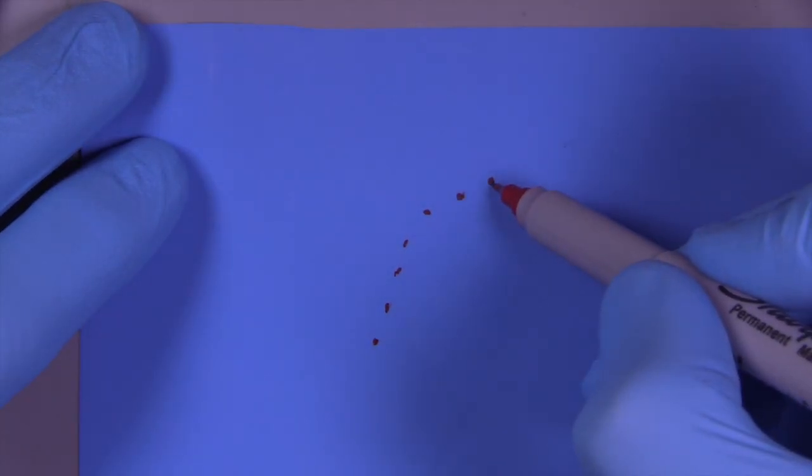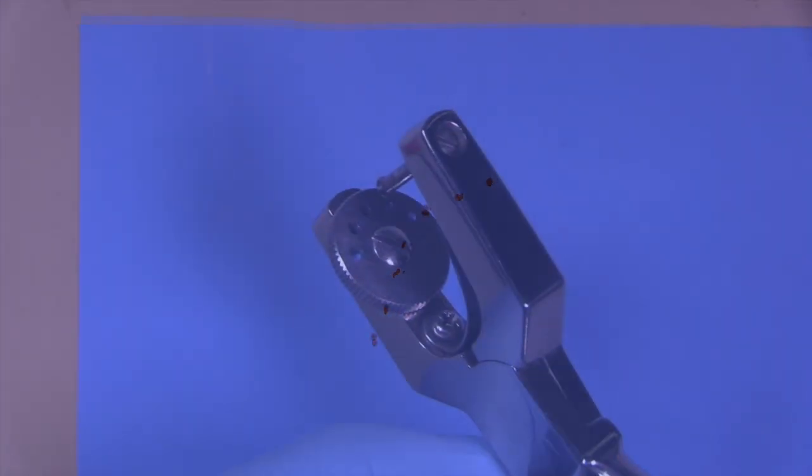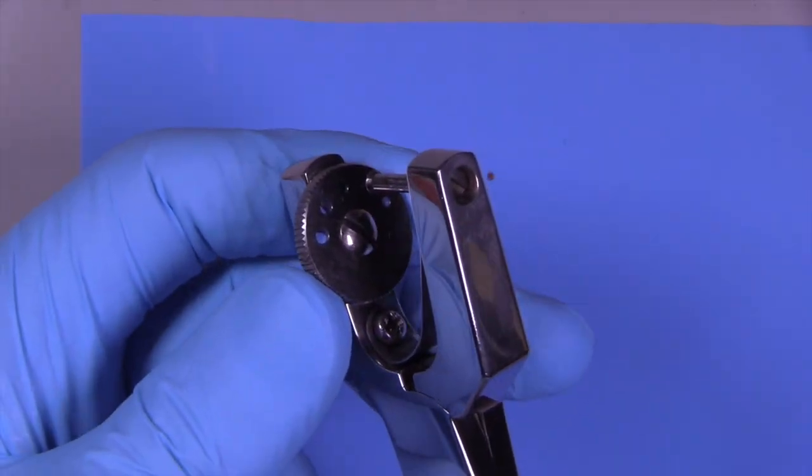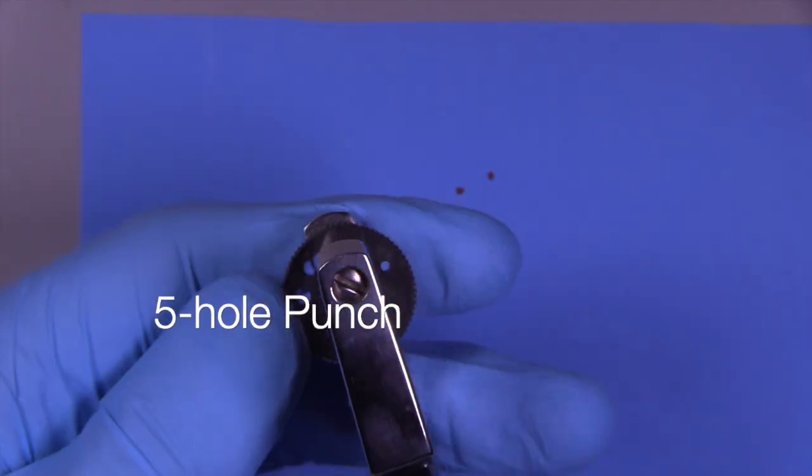a template; I like to do this by hand. This is a five-hole punch, and these are adequate. I don't think you need to have a six-hole punch—we can usually find the right hole that we need.